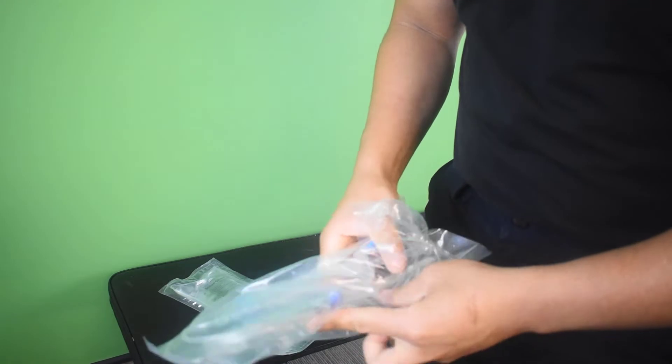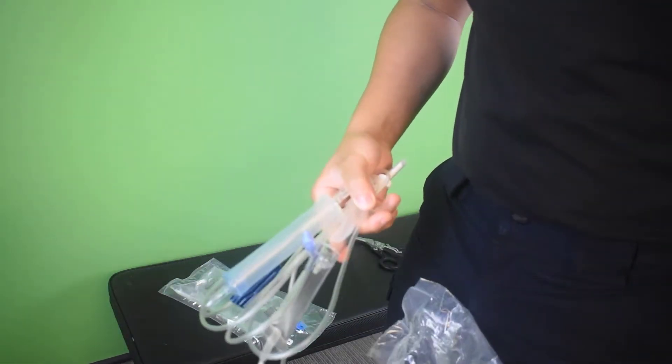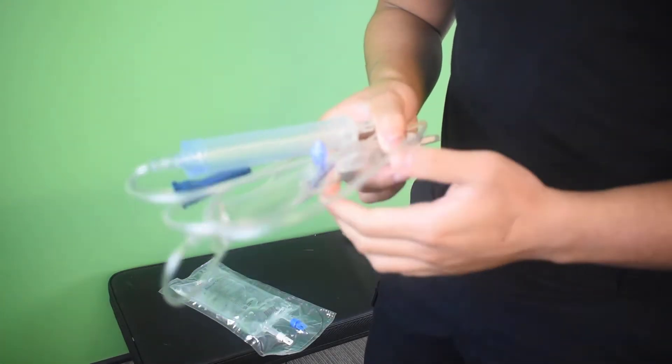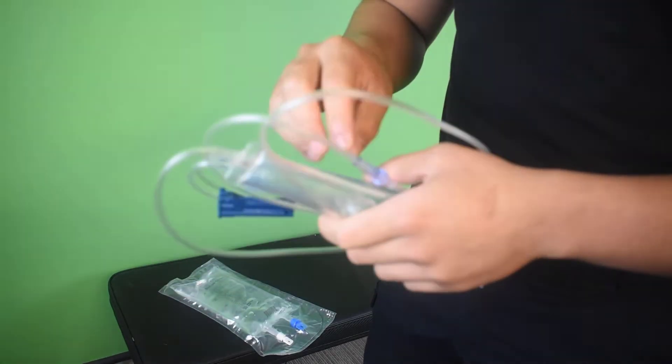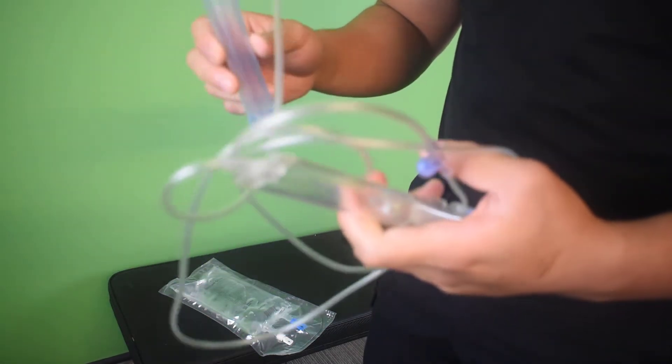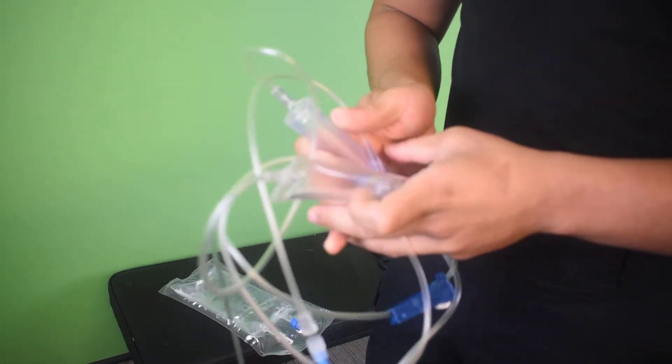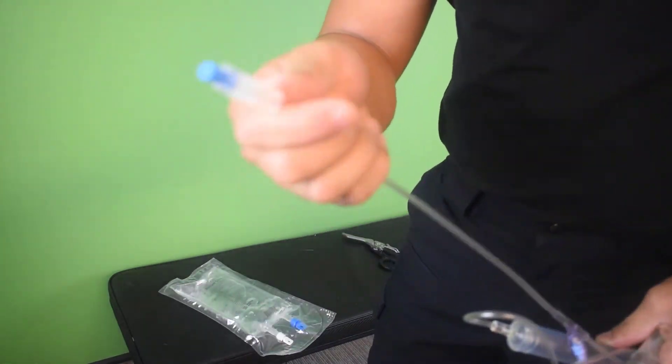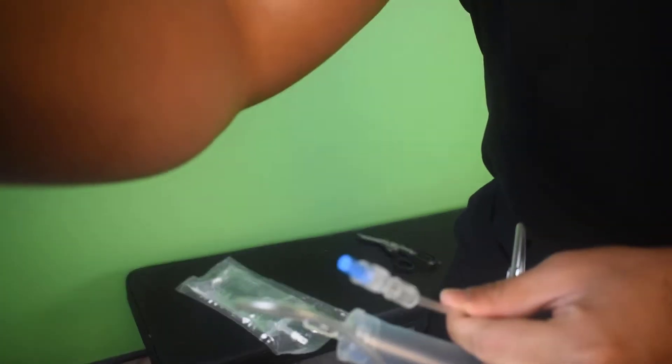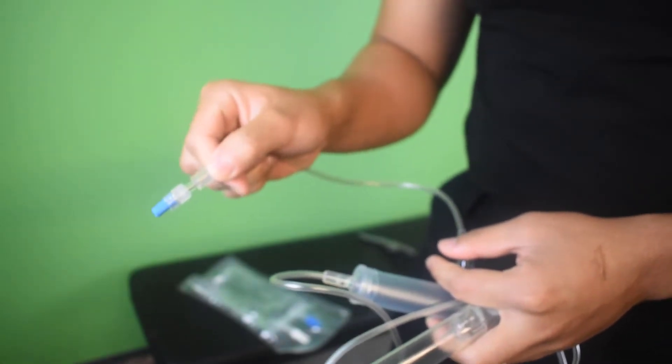So you should be familiar with the pump sets at uni, but I'll open it up and I'll go through it. And just with any of these, you always will be wearing your gloves. I'm just not wearing it because this is just for demonstration purposes. So once you open up the pump set, the thing you never want to do is you never want the edges to touch the floor. So this is technically still almost sterile.